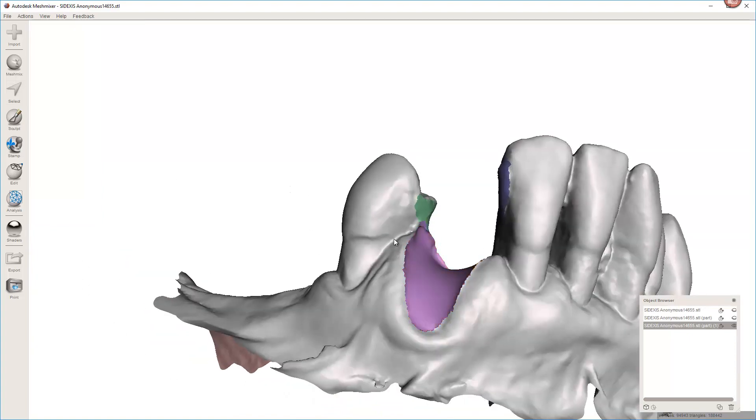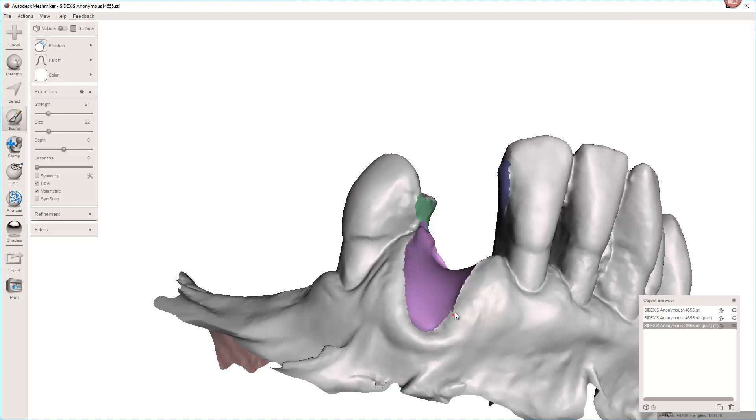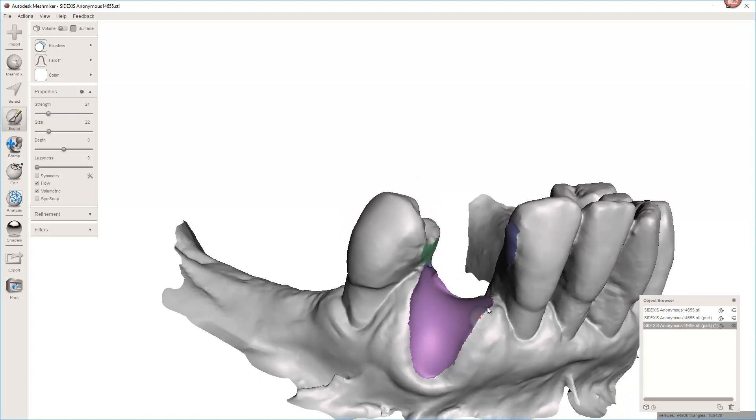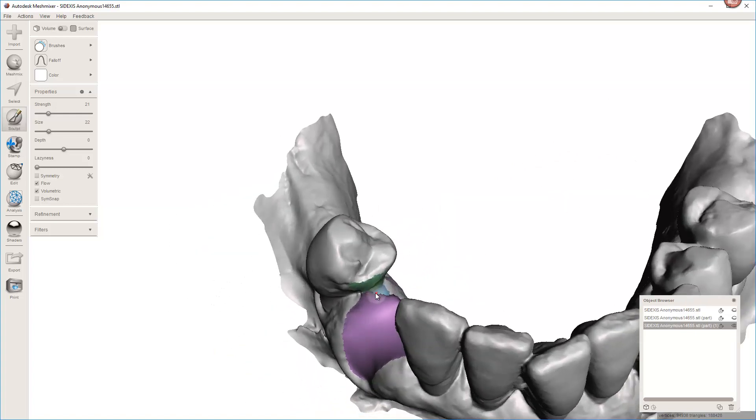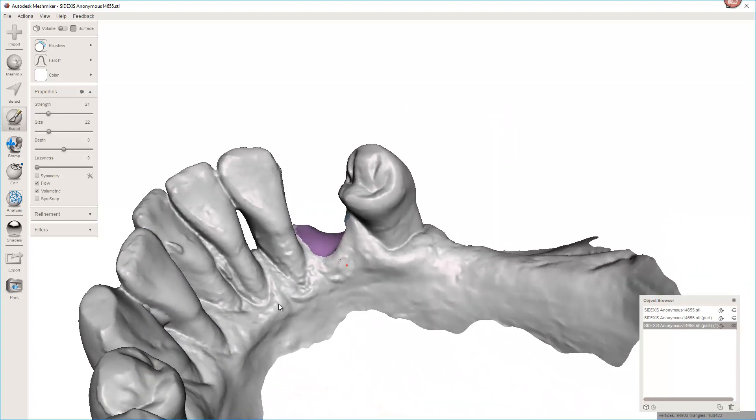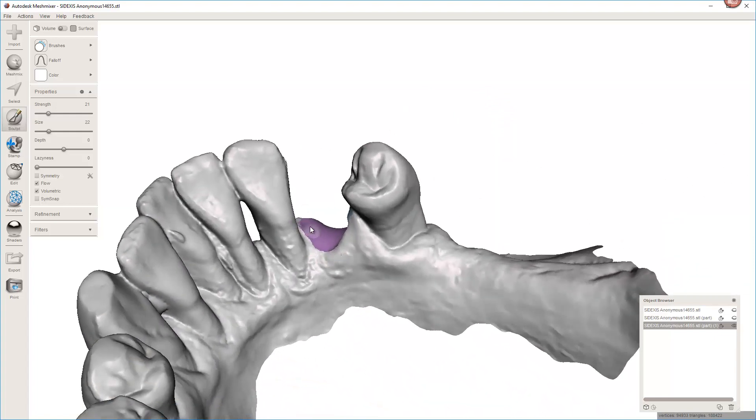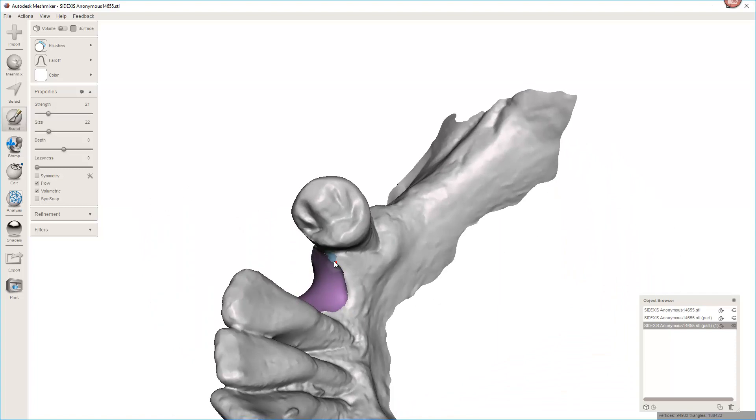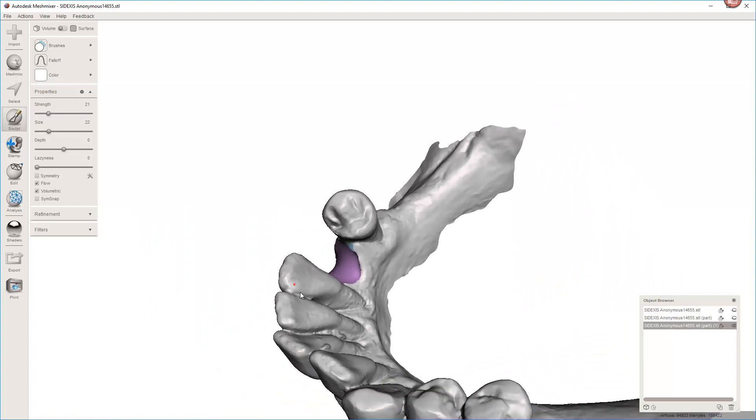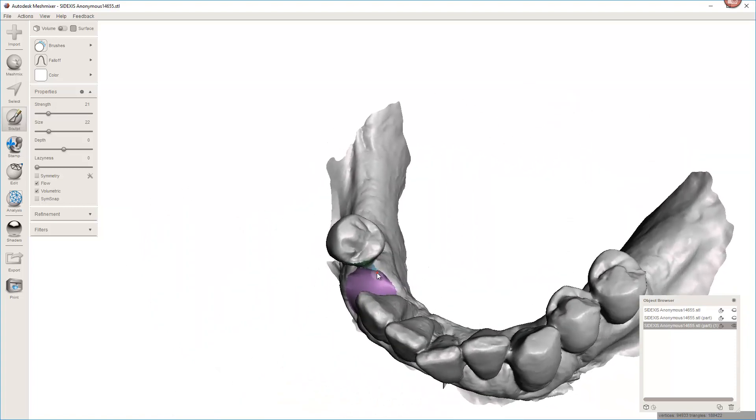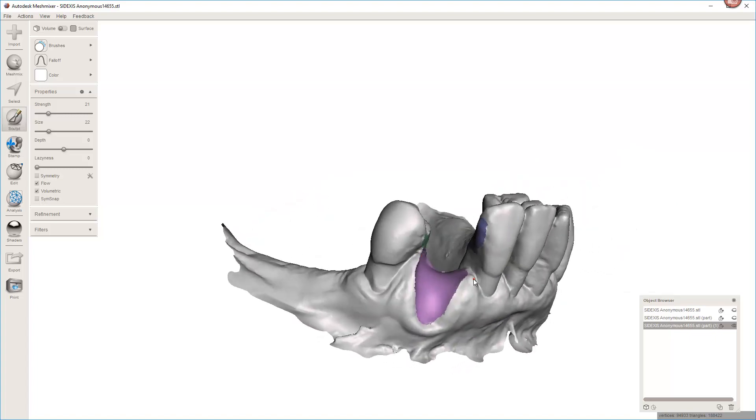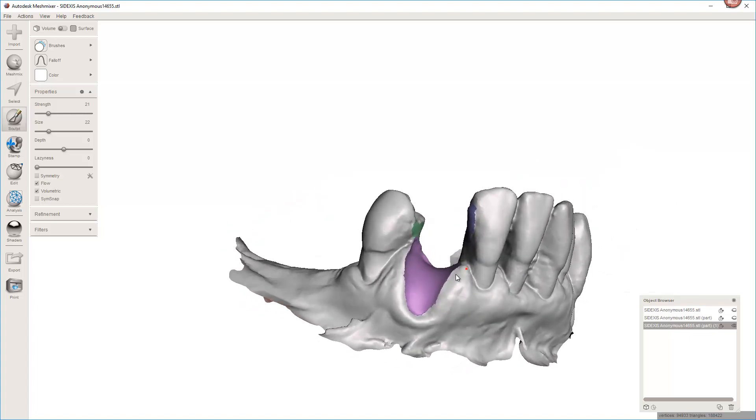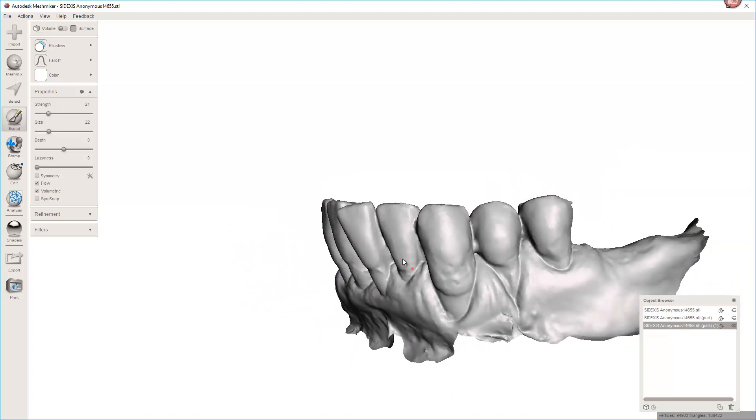And I am picky. So I'll come back here and smooth this, just so that any guide I make doesn't have any sort of weird transitions based on that. Because you're not going to have these sharp edges. And sharp edges in the guide will print a little bit different, a little bit funky. I mean heck if I end up impinging on tissue it's tissue. It's just going to push it out of the way. So that's how I would extract this tooth.